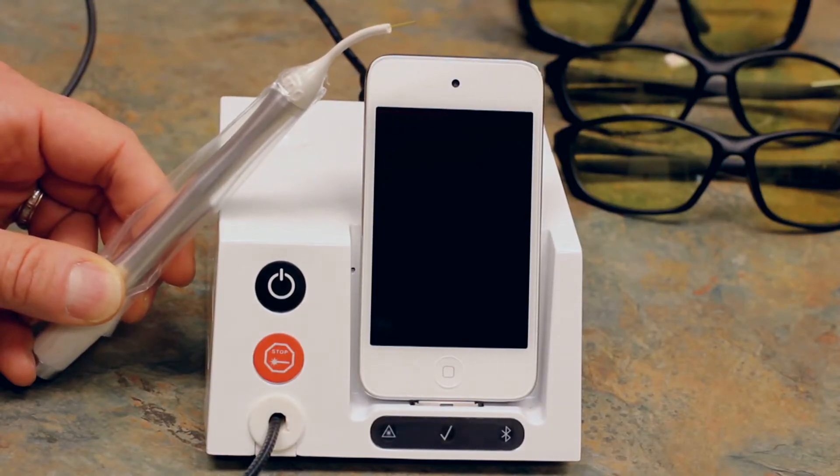We'll demonstrate using the laser on a pig mandible. If you don't have a pig mandible available, you can cut on a tomato, an orange, a hot dog, or a piece of meat such as a pork chop — anything that'll help demonstrate to you how to get the correct cutting technique. At this time I'd like you to get out your laser and set it up so we can go along and do it together. So let's go to the laser.